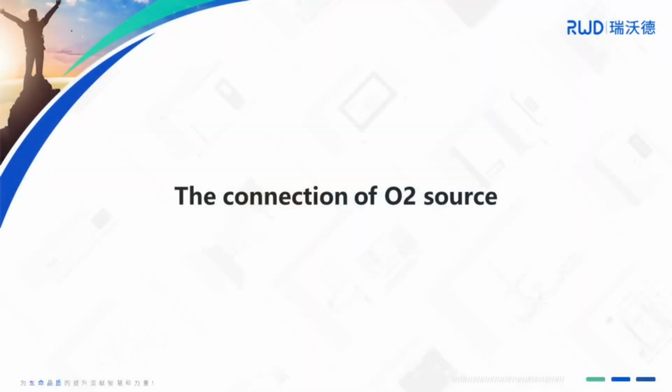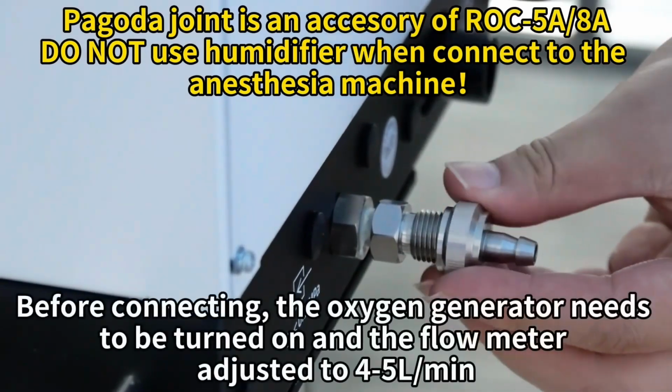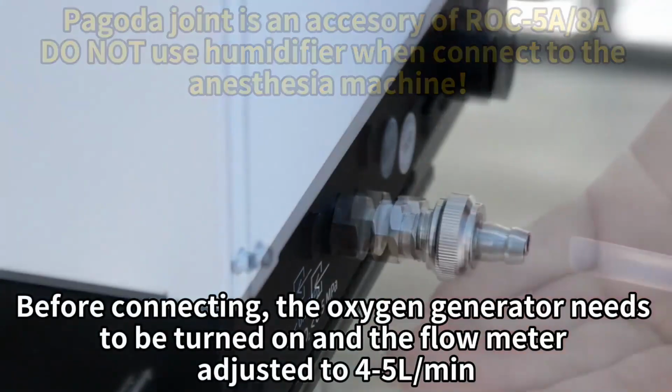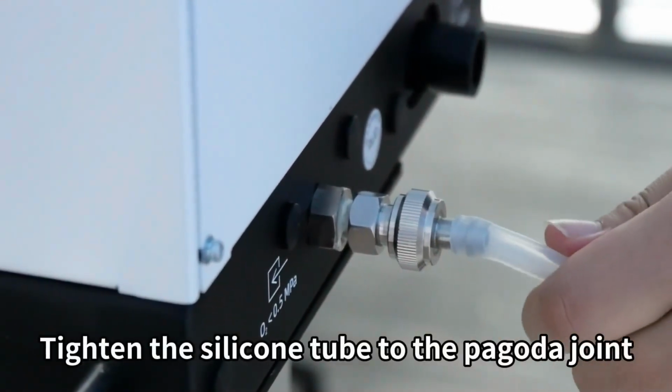The connection of oxygen source. Tighten the pagoda joint to the gas inlet. Before connecting, the oxygen generator needs to be turned on and the flow meter adjusted to 4 to 5 liters per minute. Tighten the silicone tube to the pagoda joint.